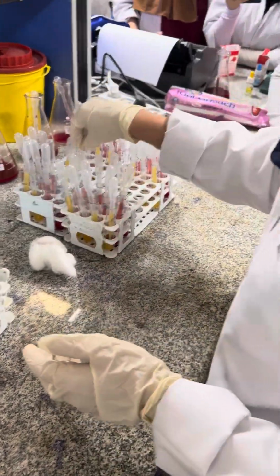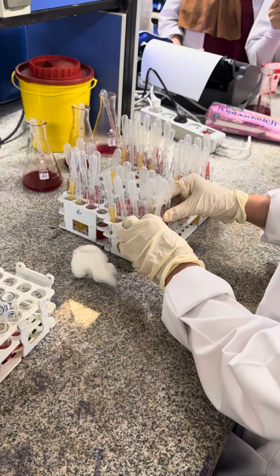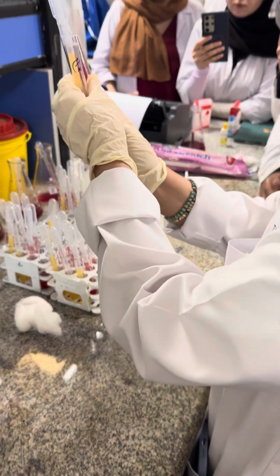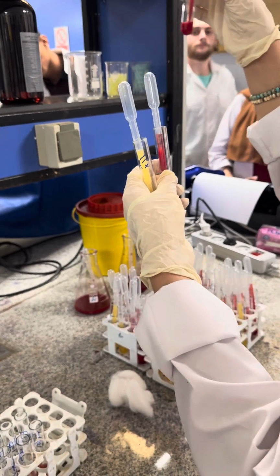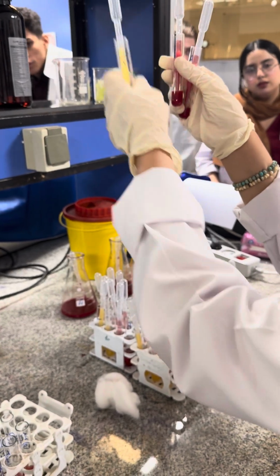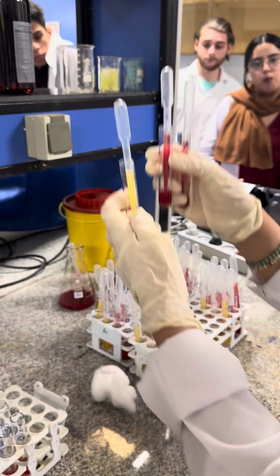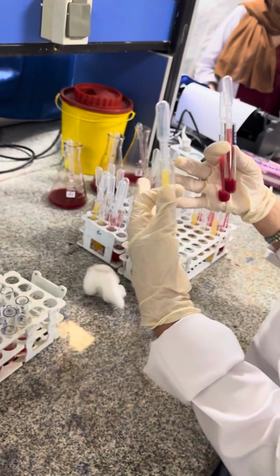For example, for ABO blood group typing, if your blood group typing is the indirect method, as you remember, you have a tube that contains A RBC, another one contains B RBC, and the serum. And you must detect the ABO blood group that is related to this serum. You know, is it necessary to again explain for you or no?